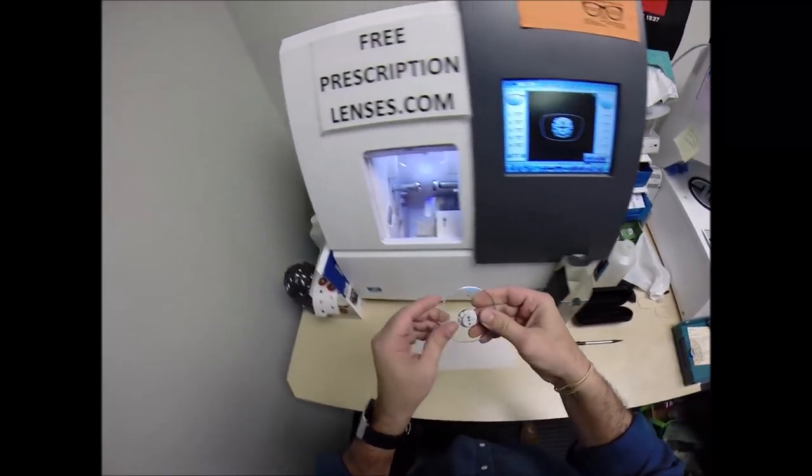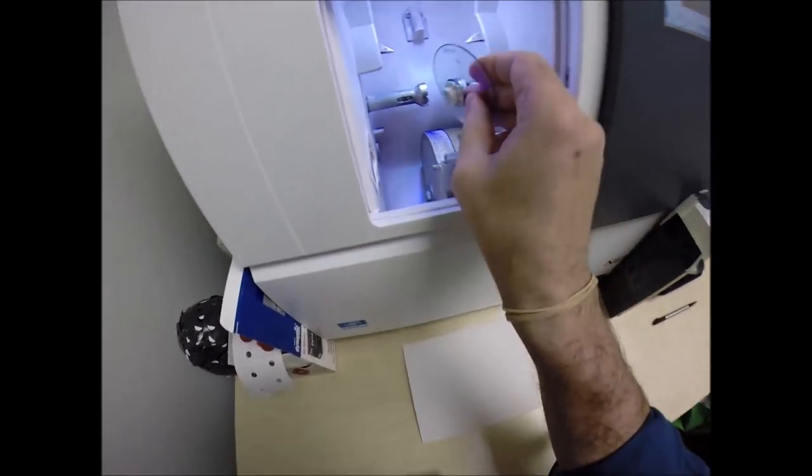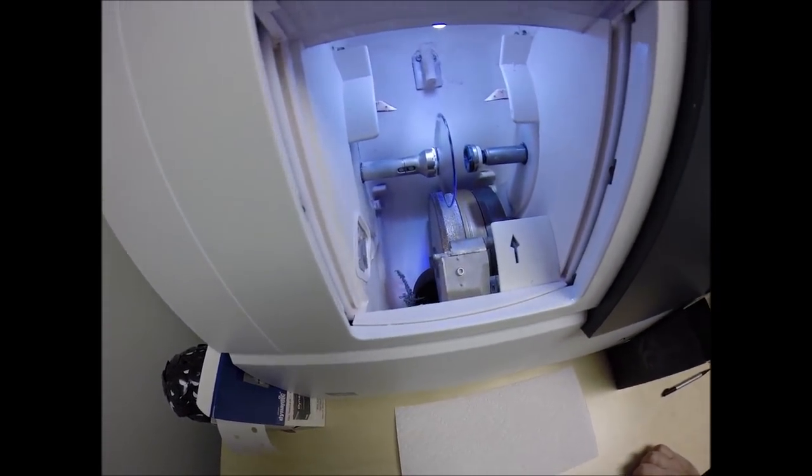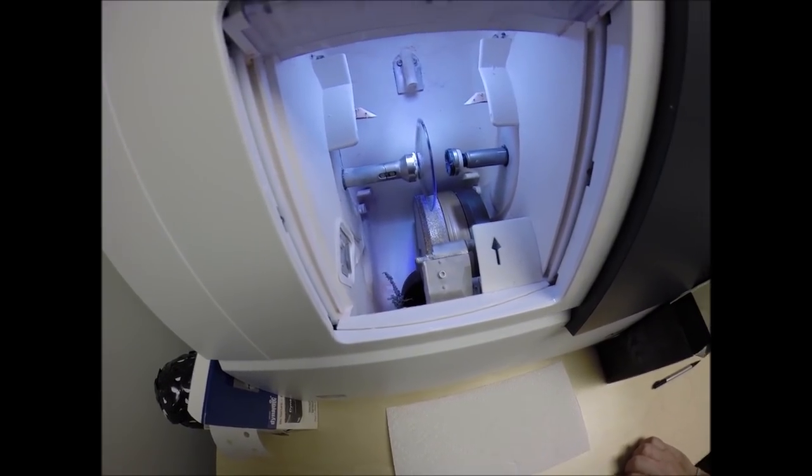I'll press this on there firmly. Line up the magnet into another magnet there in the chuck. And of course, by now you know I like to call it the Charles because I just don't know this machine well enough to call it chuck.